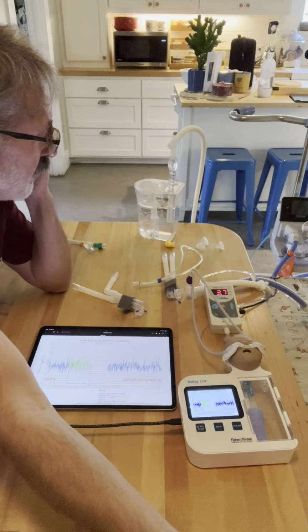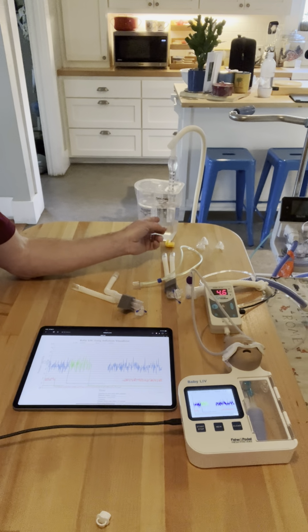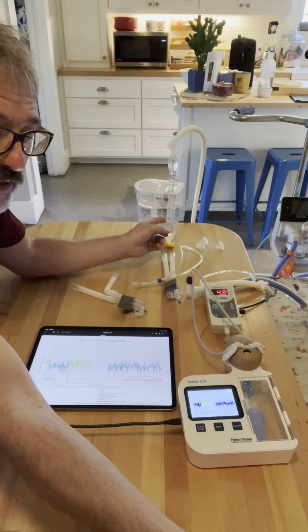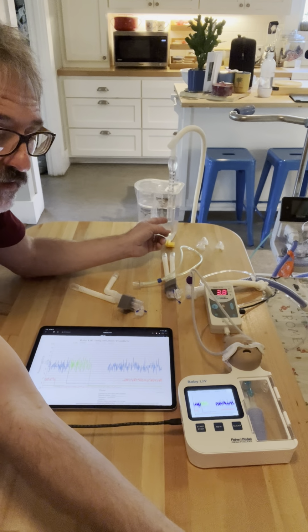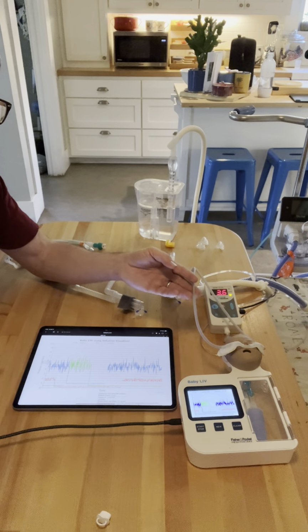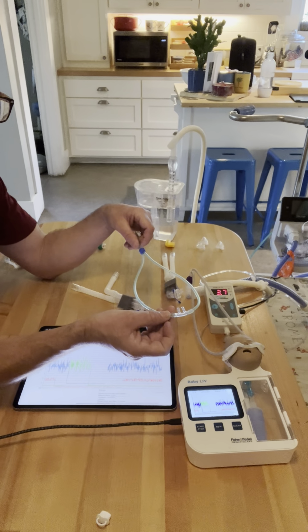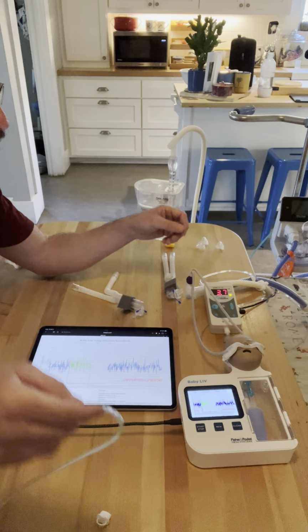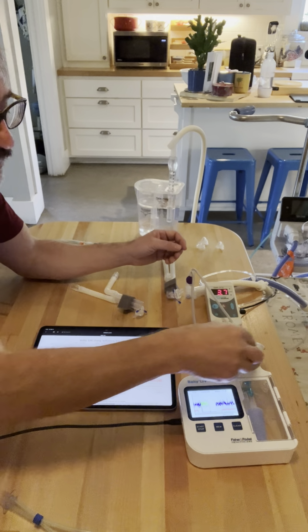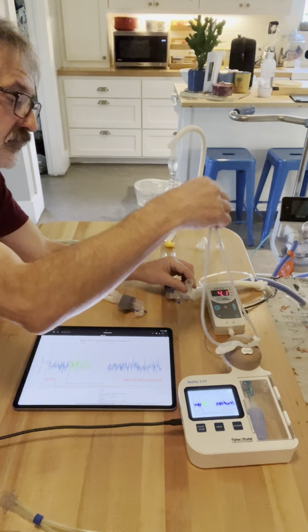And when I increase my flow, I'm now able to create false bubbles because I've gone past what it's able to withstand. But we have just demonstrated here that the purple Optiflow does indeed have larger bore tubing than the blue ram, even though they have the same prong size. Very interesting. Okay, let's go ahead and silence that. We've got one more test and then we're done. We're gonna do the big boys.